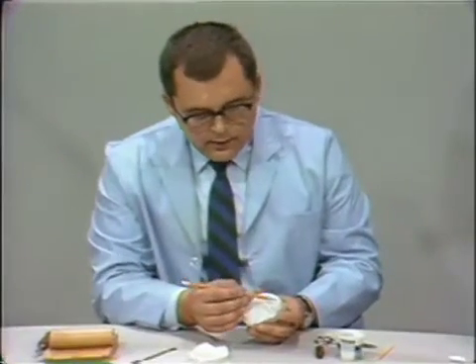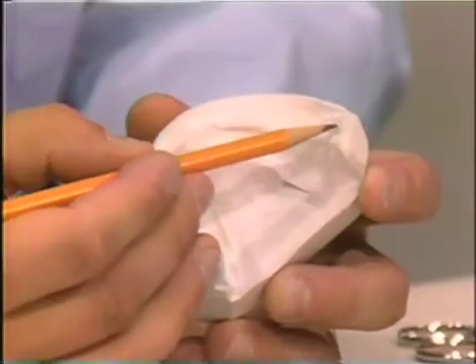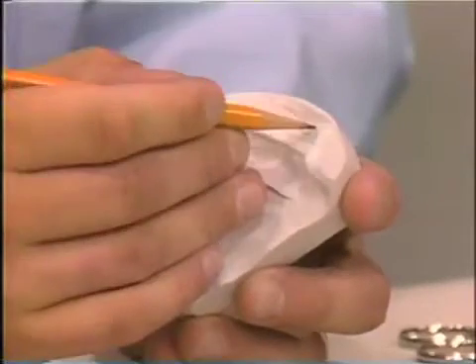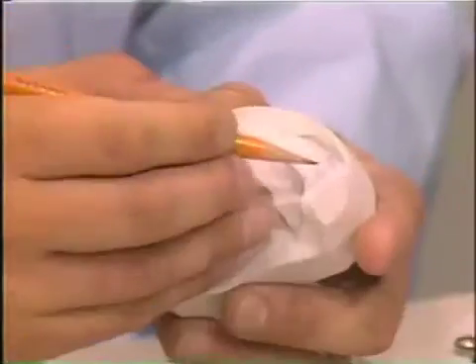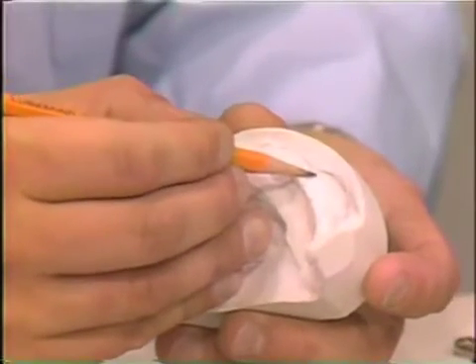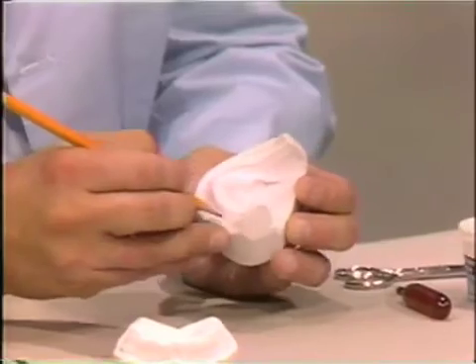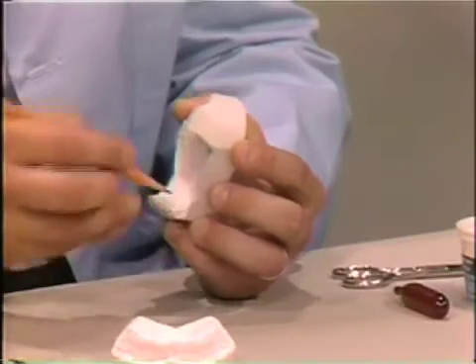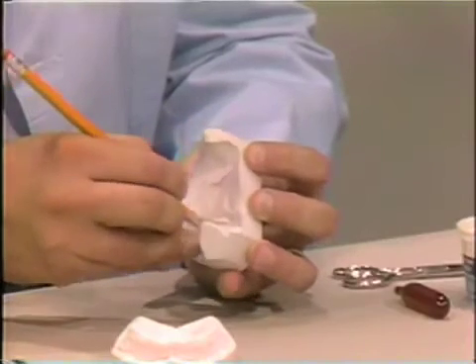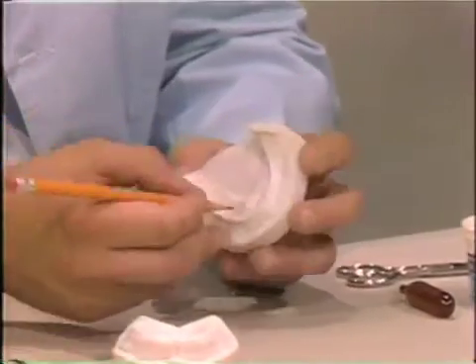I'd also like to do this on the lower at this time, even though we're not going to be making a tray on this model. You can see here in this close-up that in the external oblique line area we are overextended, and we can pencil on our cast the most likely area for the flange of the denture or the flange of the impression tray. This can be modified at a later time when we go to the mouth with compound. We outline the entire periphery of our final impression tray, particularly in the lateral throat area, otherwise known as the retromylohyoid space, the floor of the mouth in this manner. This will guide us in placing the wax spacer on the cast.